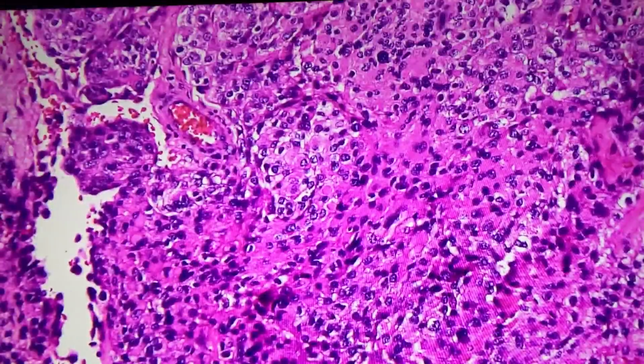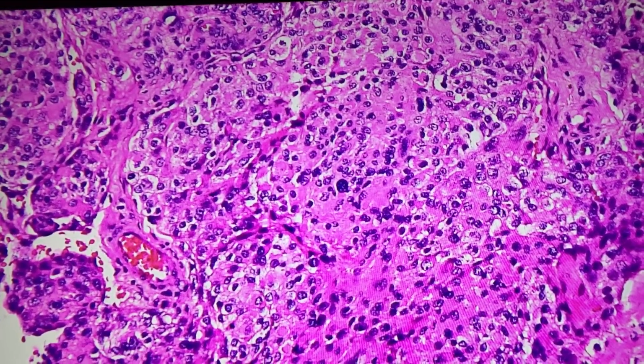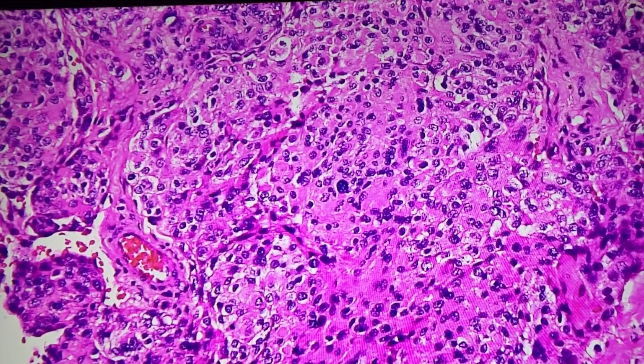Papillary what? Yes, I'm not sure of the exact variant. Unfortunately Erica is gone now. But this is a meningioma variant. So just remember that if you see an epithelioid looking thing in the dura and you're tempted to call it malignant or say that it's a metastasis, step back and think, could this be a meningioma variant of some kind? So that's what this is.